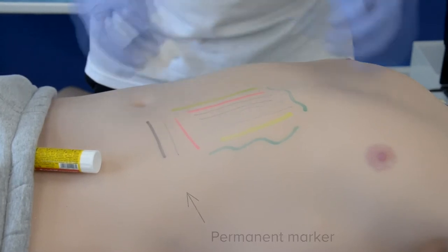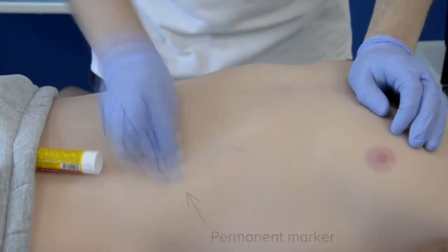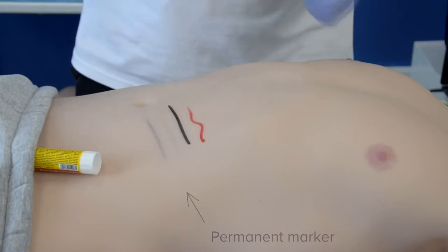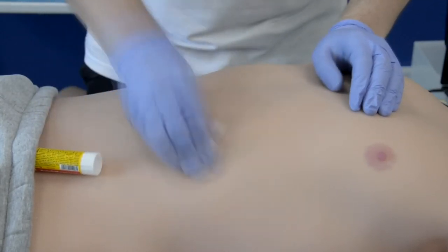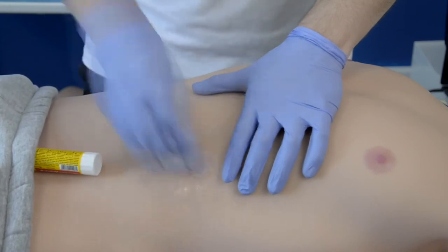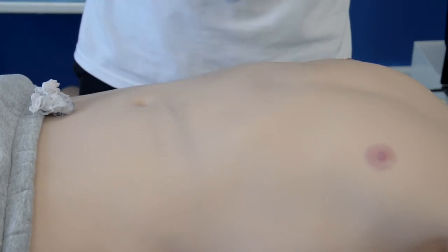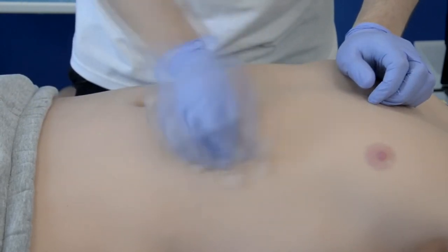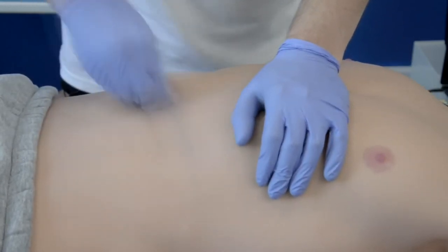You can write, paint, use whiteboard markers and alcohol-containing markers, pencils, and even glue on Leonardo. Everything will wipe off easily, making it the easiest to care for patient sim and prolonging his good looks. You can even use alcohol-containing solutions to disinfect the skin. The skin is stain resistant, very stretchable and durable, hiding puncture marks and making it soft to the touch — just like real skin. This also means you can glue bone fragments onto Leonardo and use various attachable pads to simulate burns, dust particles on the skin, and protruding fractured bones.